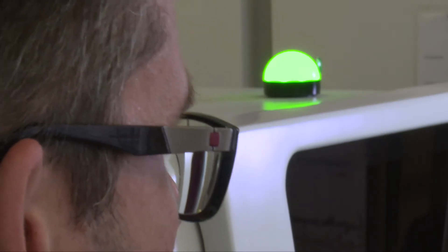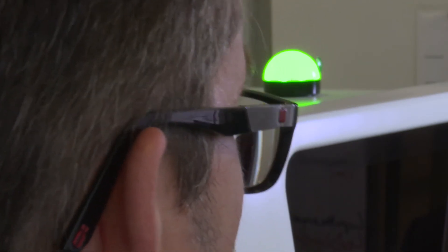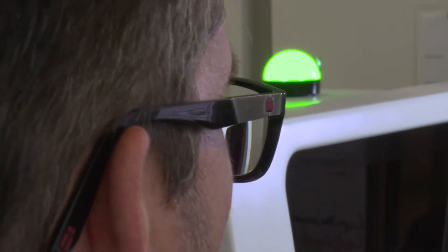Remember that we are in a hospital that functions 24-7 and that at night there's only one person. They must be able to read and understand the instrument status without being near the screen. So this is really useful.